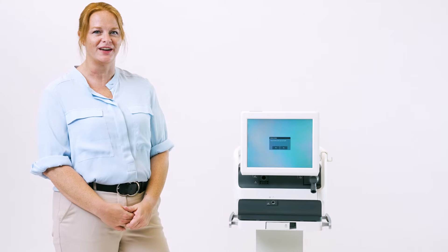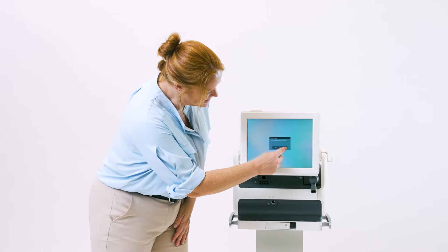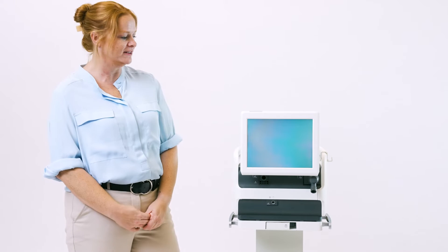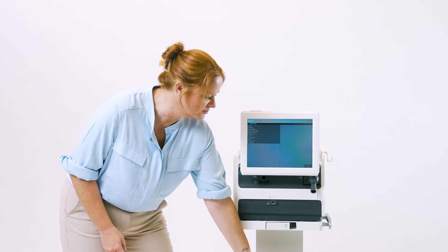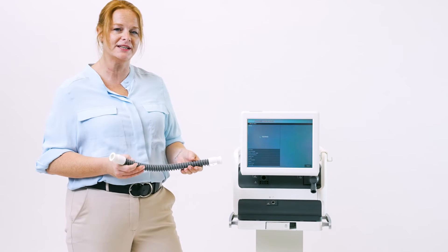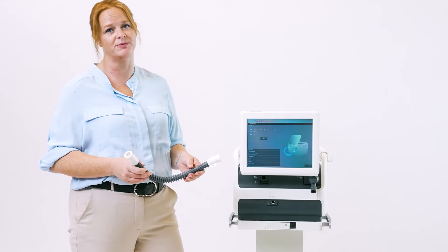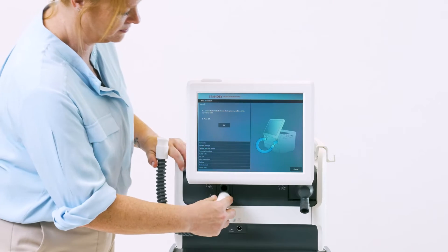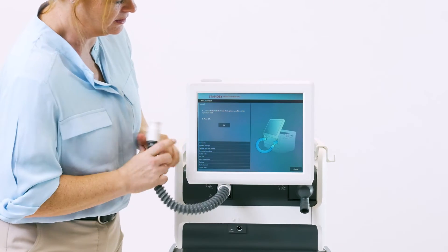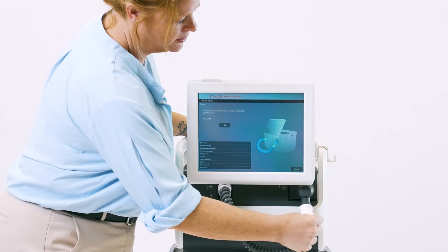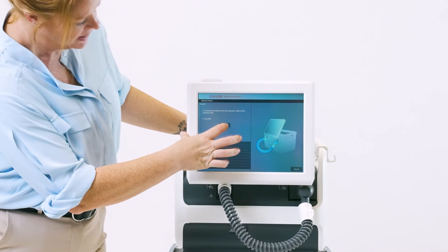Let's start with the pre-use check. First, touch Yes in order to activate it. Once it directs you, it will show you illustrations using your test tube to connect between the inspiratory and expiratory outlet. Once that's completed, hit OK to start the testing.